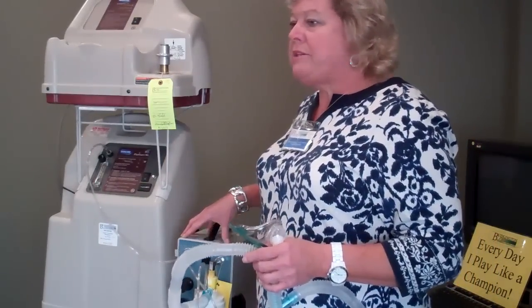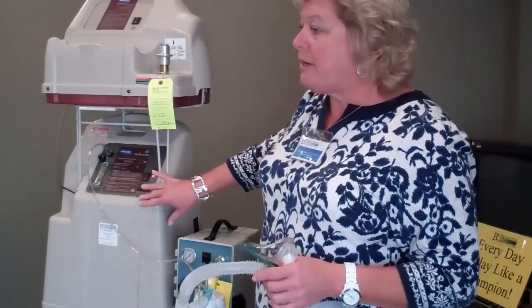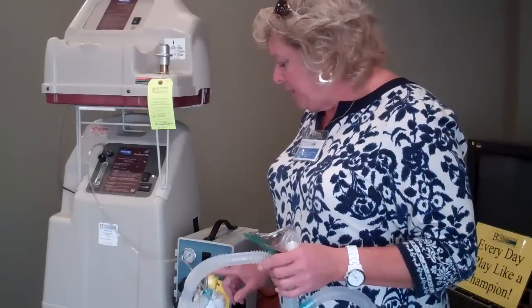Remember that the compressor — the 50 PSI — is a room air compressor. It does not produce oxygen, so you have to have oxygen come from another source. And that's why we're using the dial to dial it in.